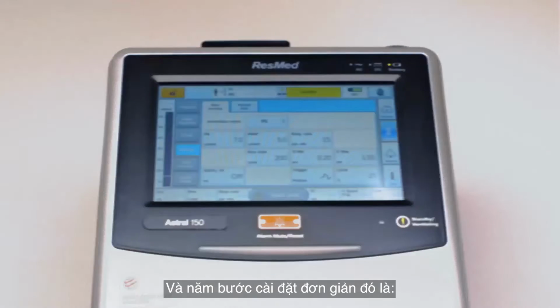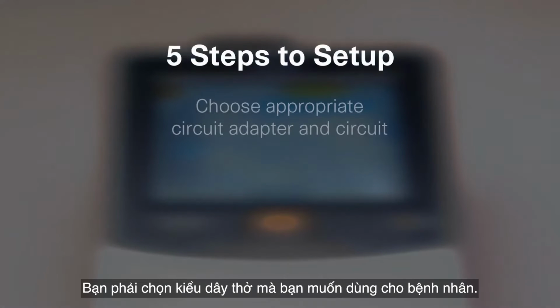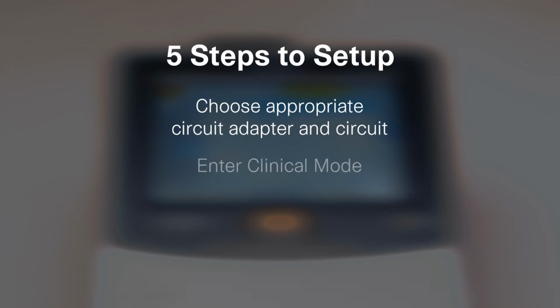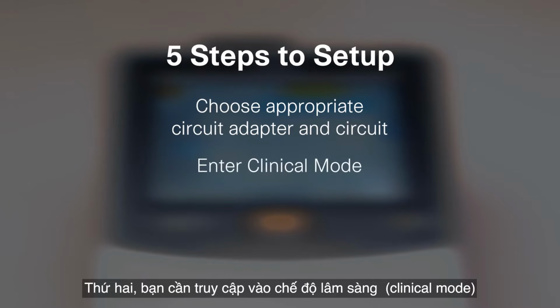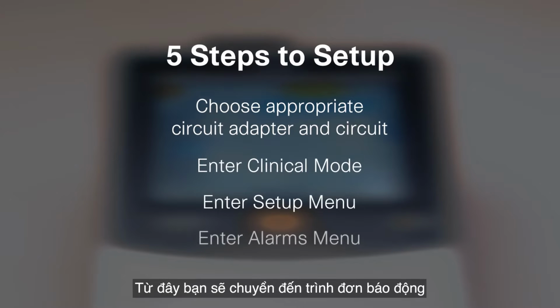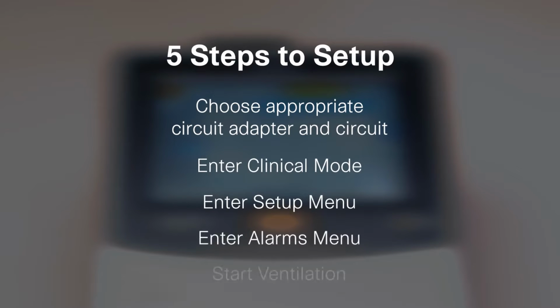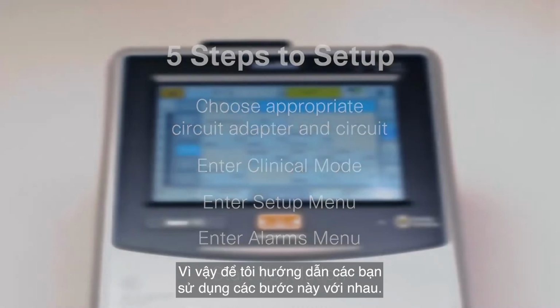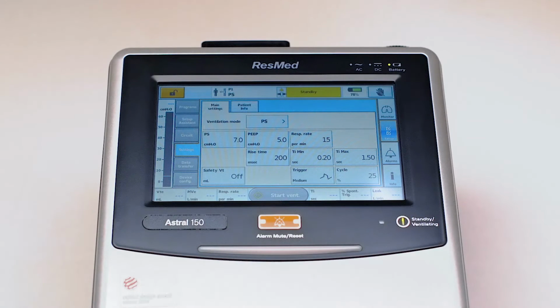care. So the 5 simple steps to set up are: you have to choose your circuit that you want to use for your patient. You also need to choose the correct circuit adapter. Secondarily, you'll want to be in the clinical mode. Then you'll want to enter the setup menu. From there, you'll move to the alarms menu. And last but not least, you're going to be ready to go to start ventilation for your patient. So let me show you how easy those steps are to accomplish.